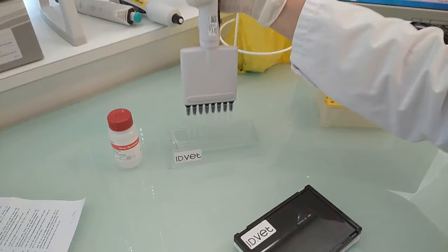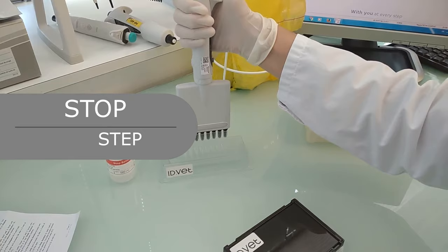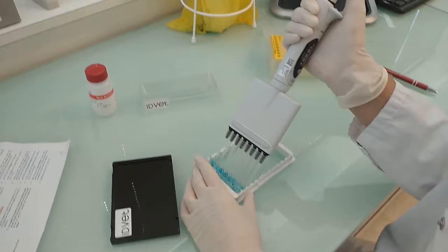Stop step: To stop the reaction, add 100 microliters of the stop solution to each well. The stop solution should be added in the same order as the substrate.